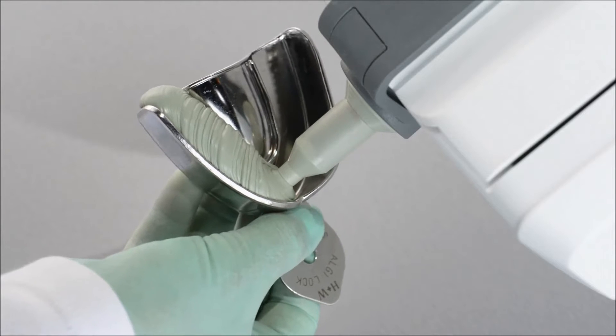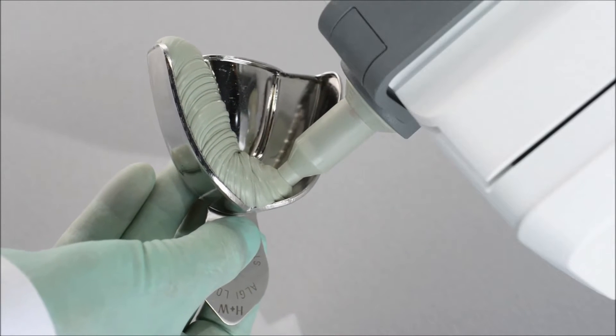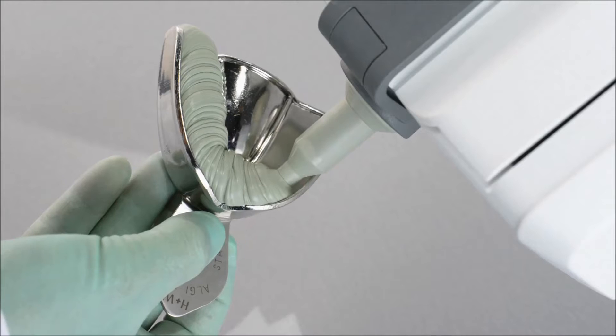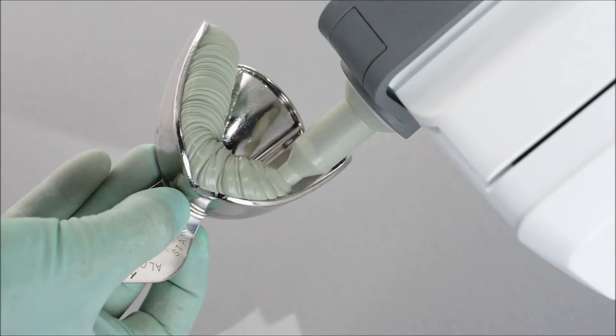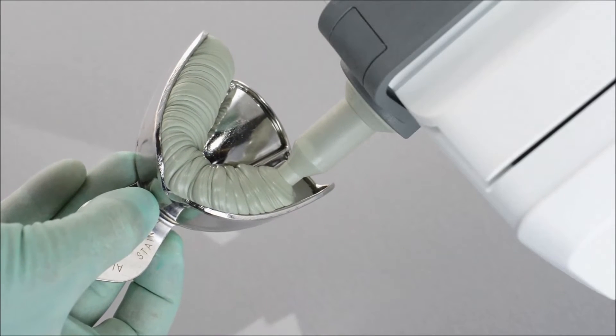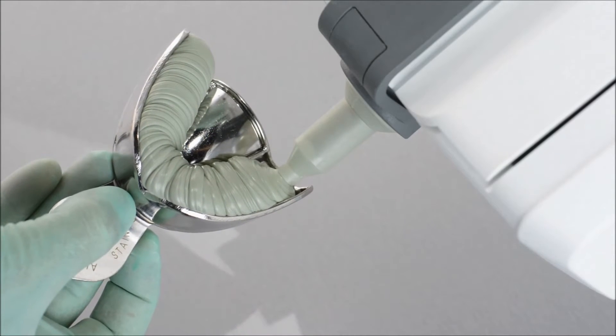along with economical and exact dispensing of the amount of material needed, and hygienic direct filling of tray and syringe without the risk of cross-contamination. The result is a more efficient overall workflow for higher productivity.